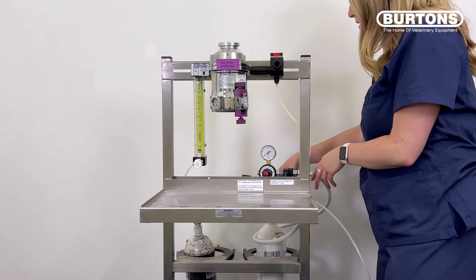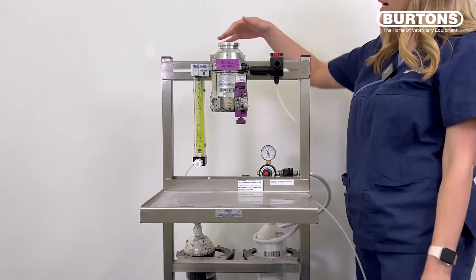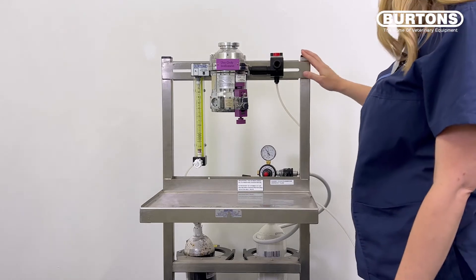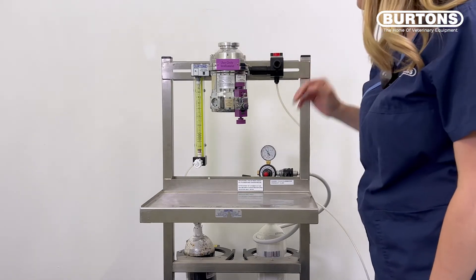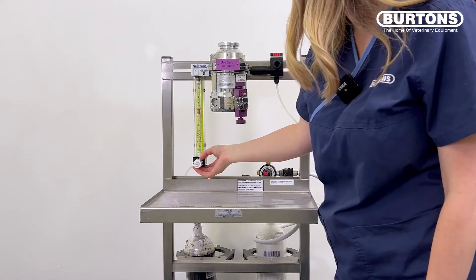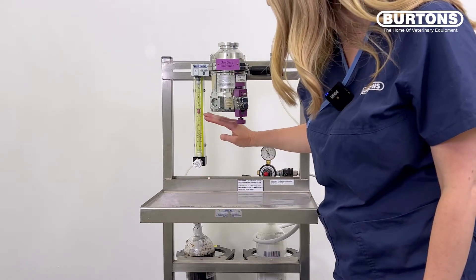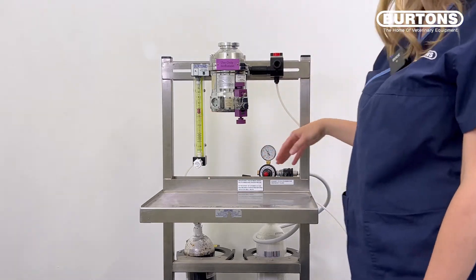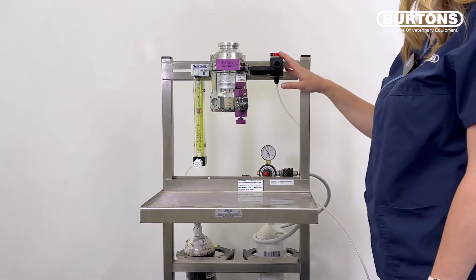So I'm going to turn on the oxygen cylinder now, and we can check all of the piping in the back bar of our anaesthetic machine here, just to make sure that there are no cracks or any leaks. What we do is turn on our flow meter — it doesn't really matter what you turn it to. I'm going to set it to 4 litres per minute. With the bobbin sitting stable at 4 litres per minute, I'm going to occlude the only exit of that gas flow, which is our common gas outlet.